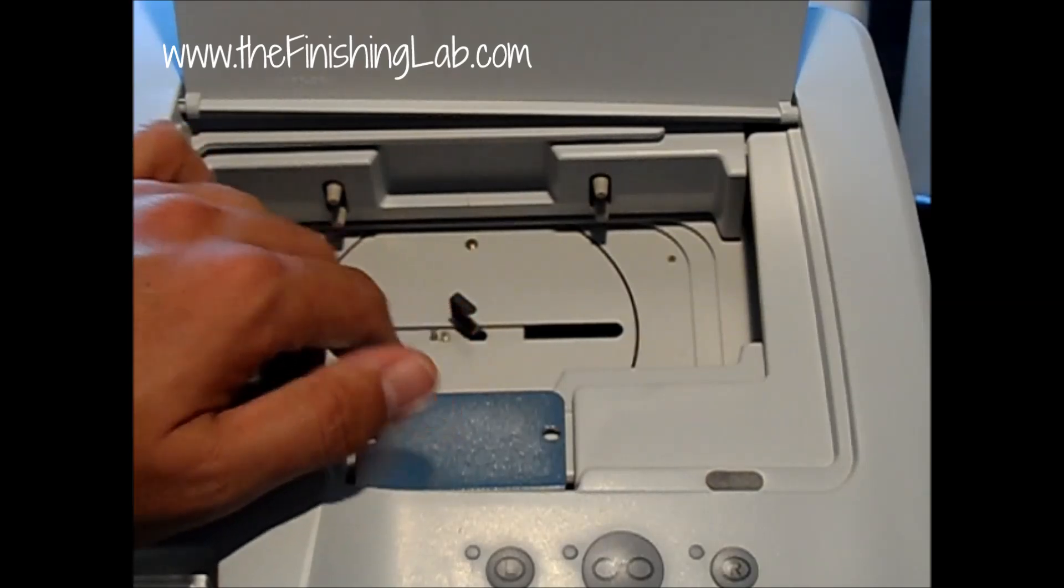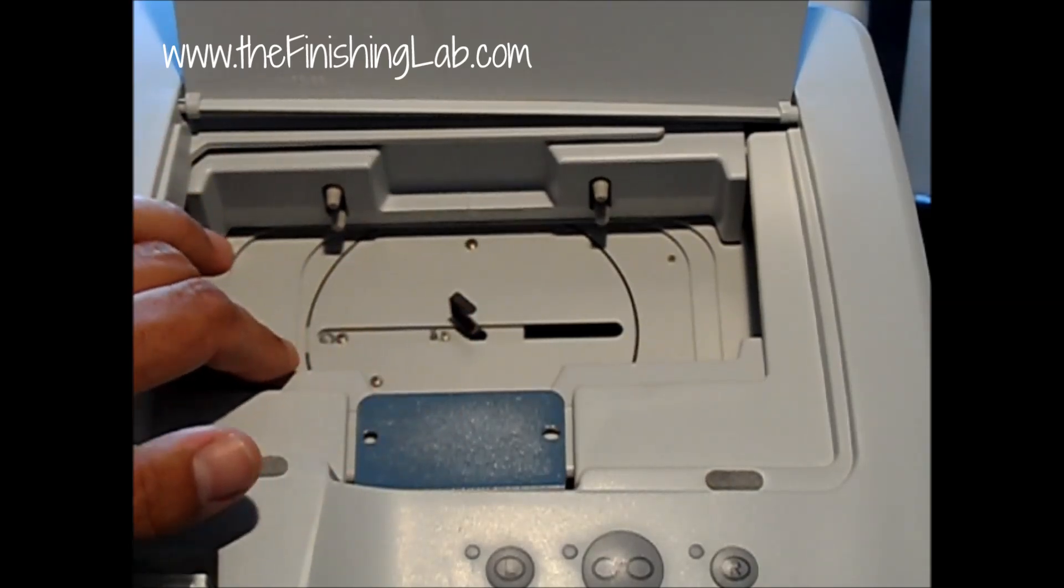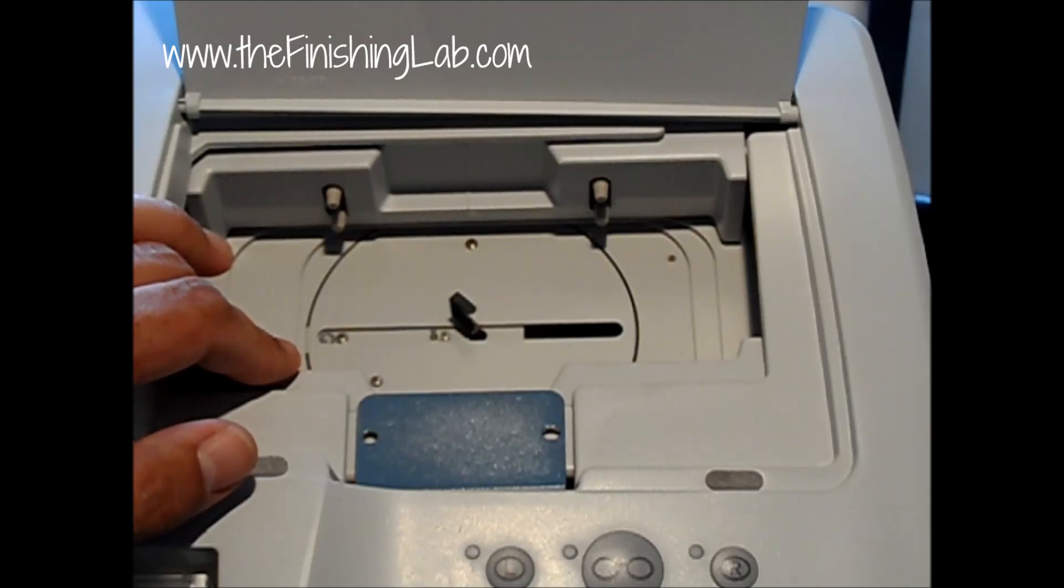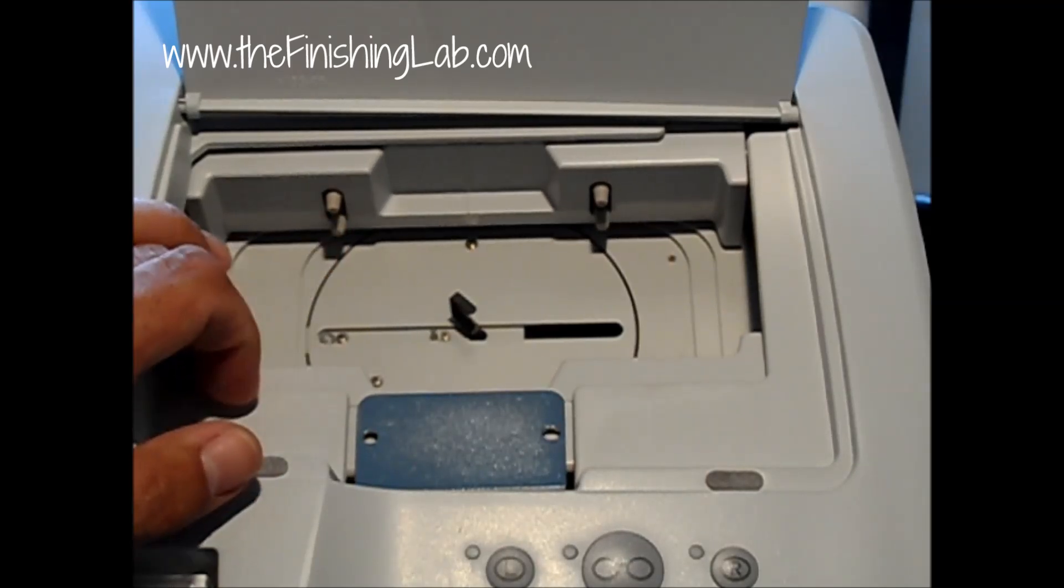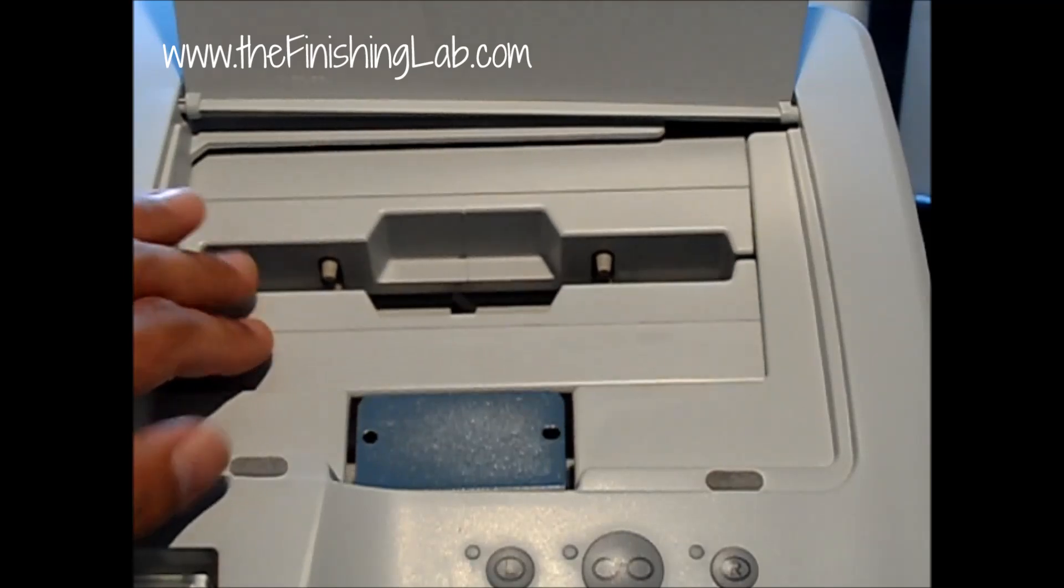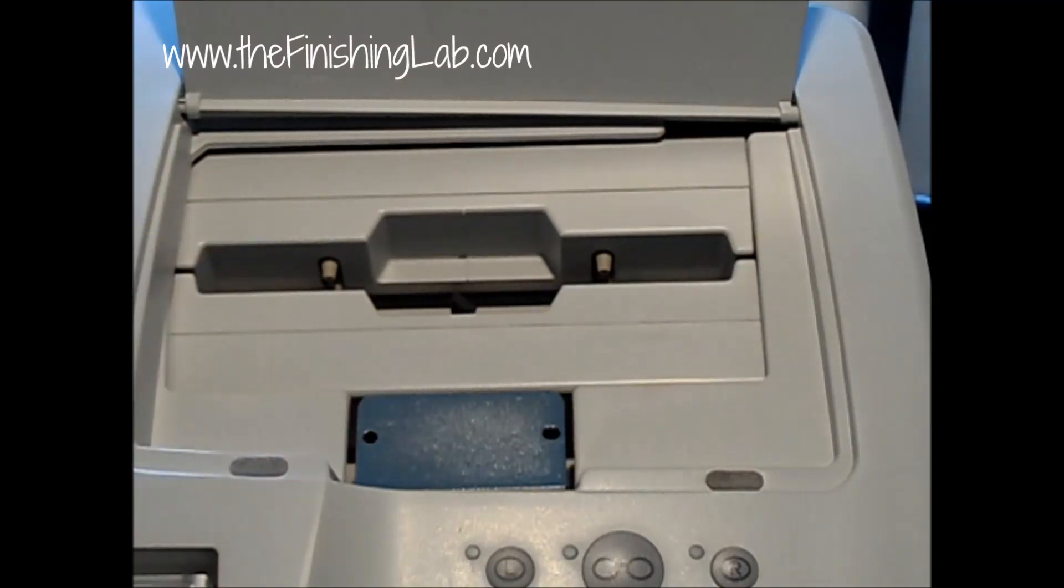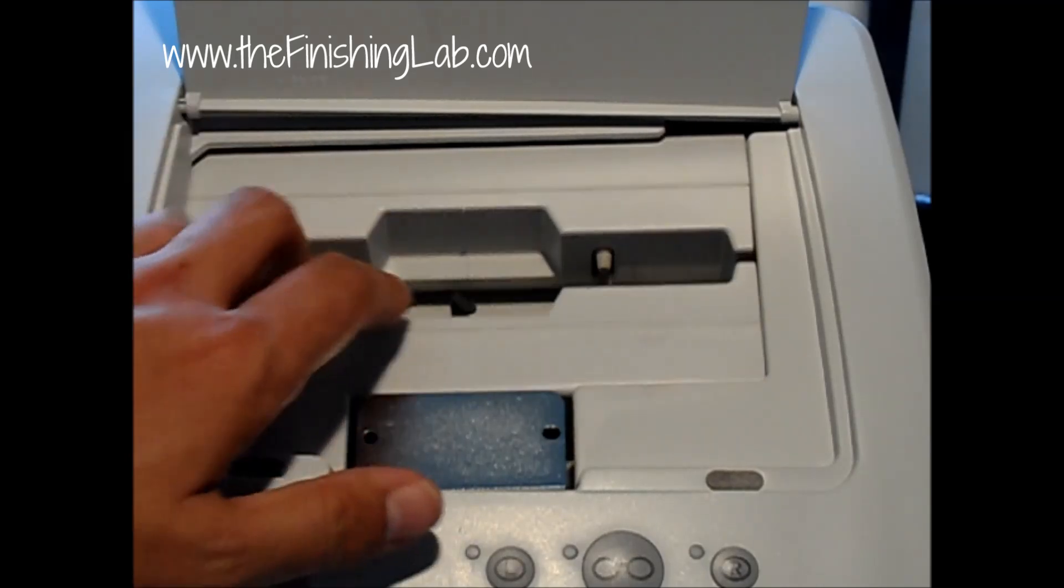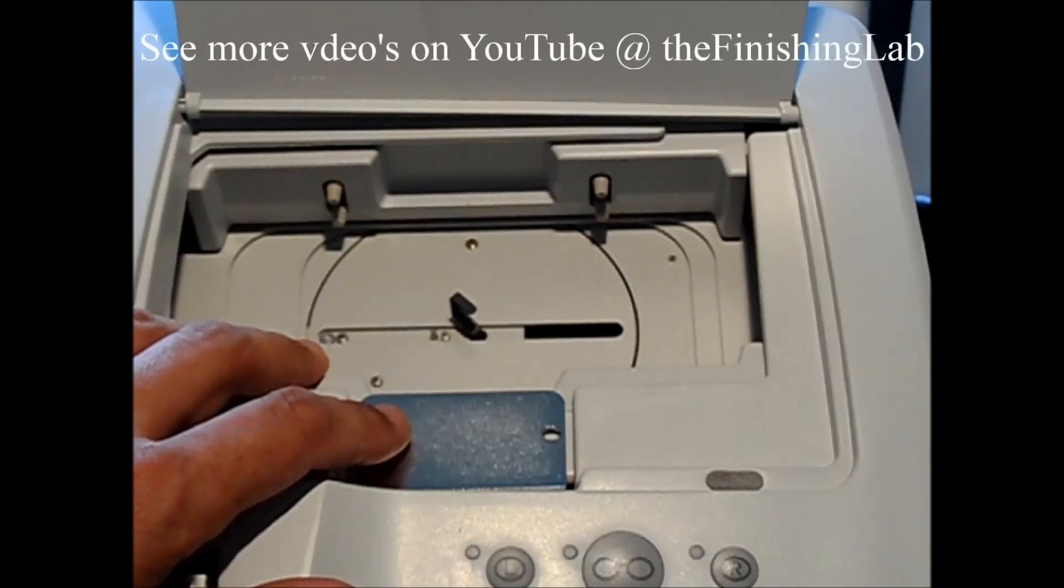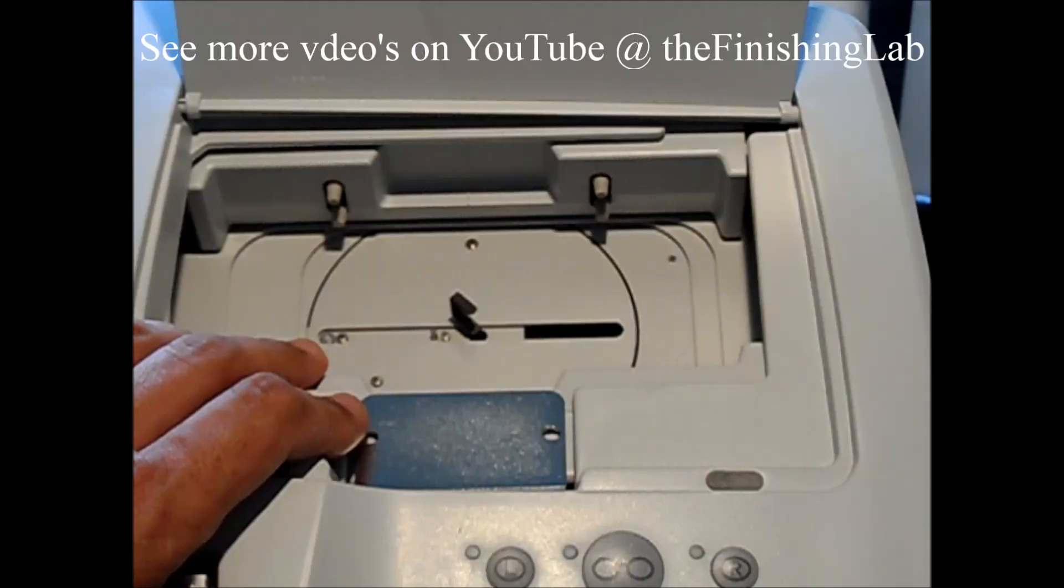You want to be very careful around this stylus. My recommendation is to do a tracer calibration once a week on a Monday to keep your tracer up to size which is going to transfer down to your edger. So if you're noticing a size issue all of the sudden your culprit's going to be your tracer. Calibrate your tracer, your sizes will be on size.